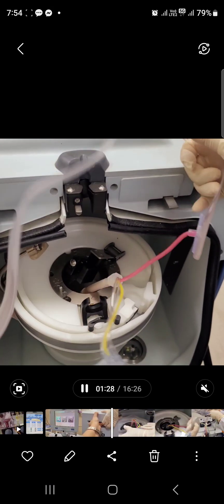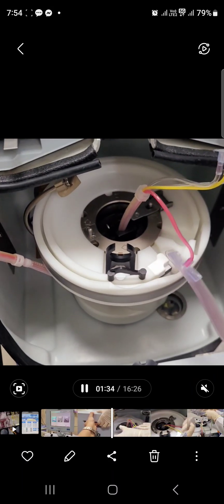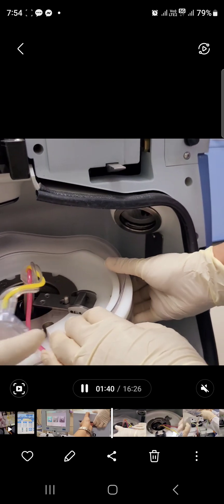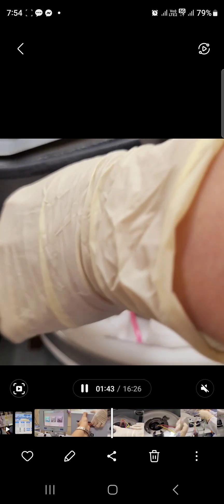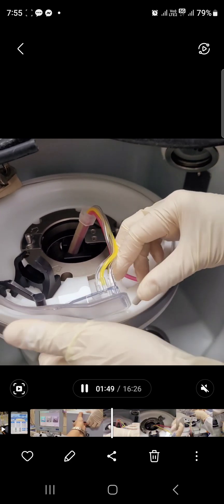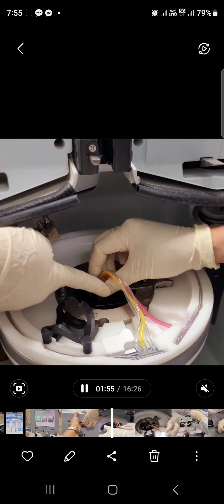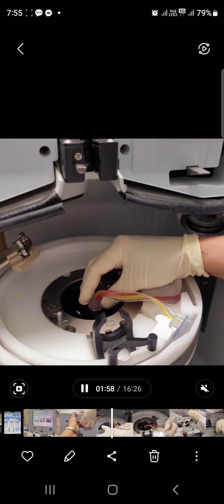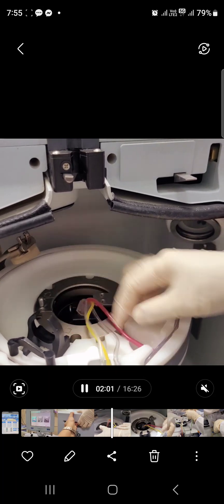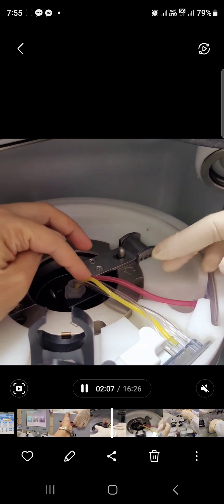Put the red on the right side. This is the zero point where you initially insert it from the side. Make sure your tubings are not kinked and tangled with each other, as this will be the reason why there will be high pressure alarms during the plasma exchange treatment. Once fully inserted, make sure all the lines are inserted on the side — this looks like a plate.